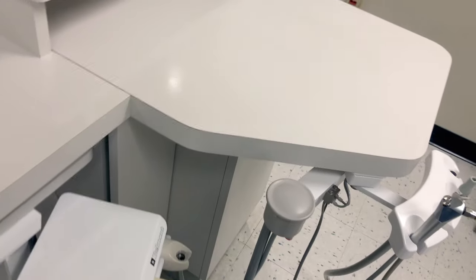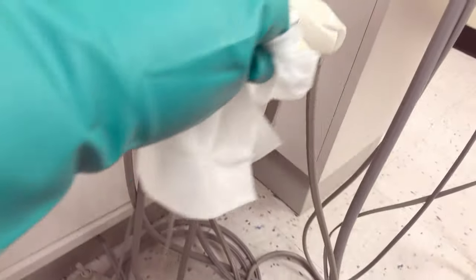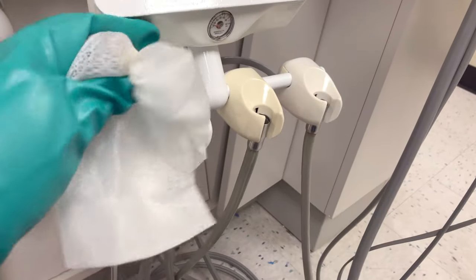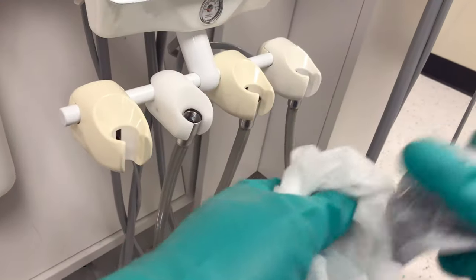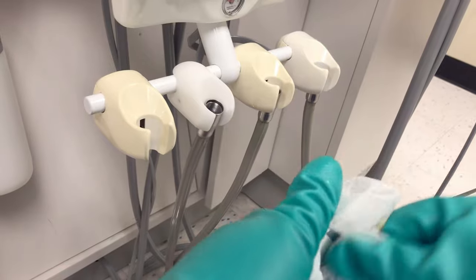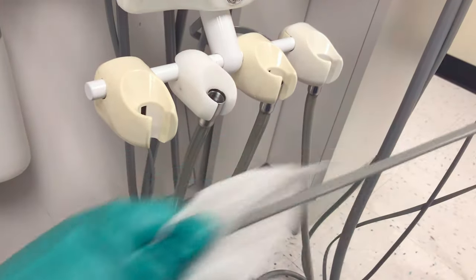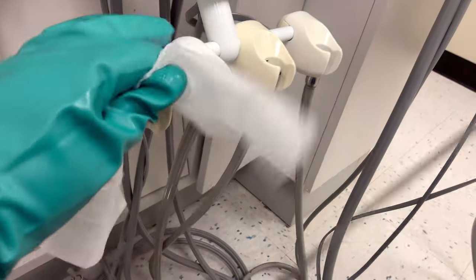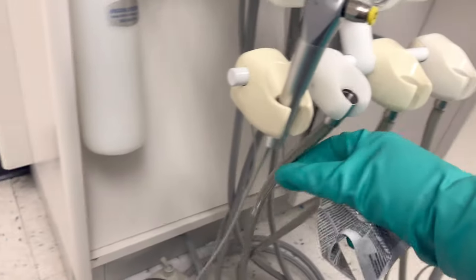Go through all the same surfaces that you disinfected previously. For video purposes, not everything is shown — for example, the curing light or the amalgamator — but when we say everything, we mean everything as far as clinical contact surfaces go.